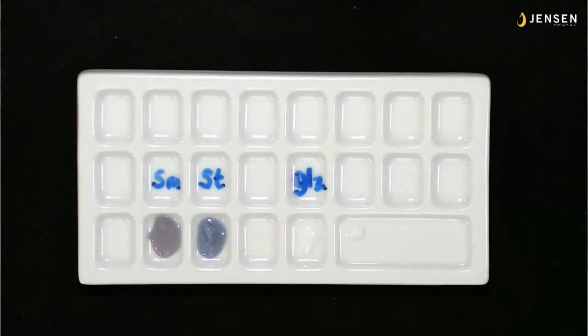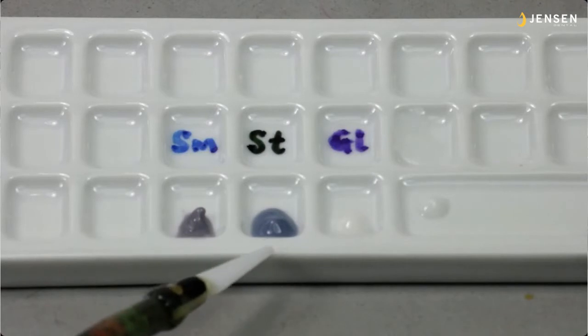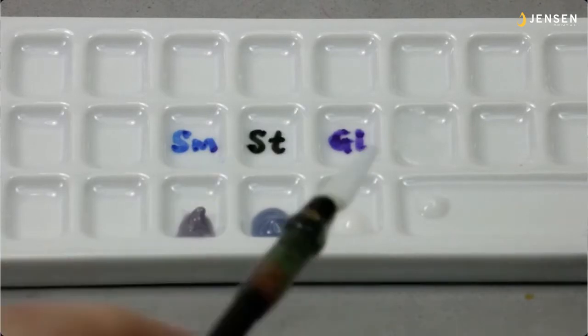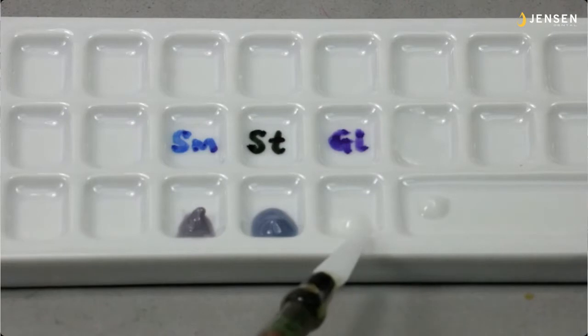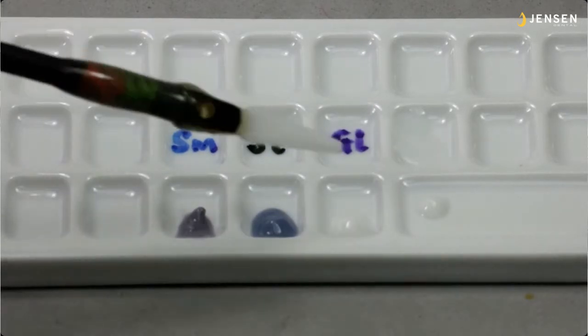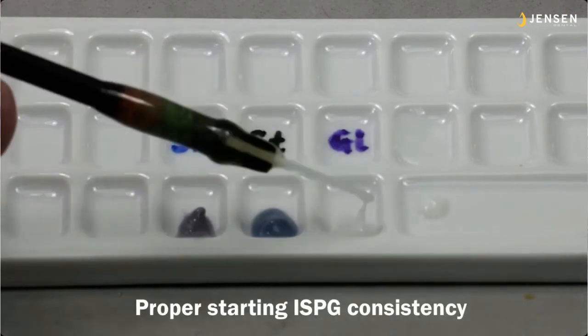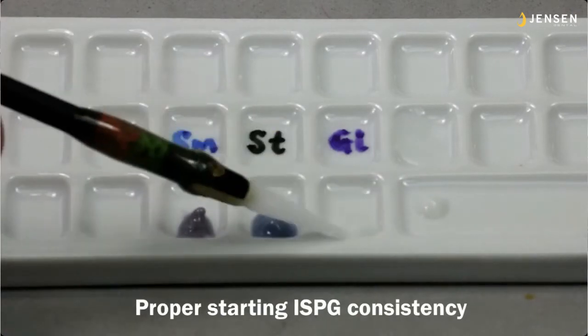So this is some stuff I just did a couple days ago. You see there, it's a little bit different lighting and a different angle. So we'll see it from both angles, because I'm going to show you a few different things I've learned. Of course, we have the glazed paste here, the in-sync glazed paste, and both those little dots, the one in the well there and the one in the well that has room for liquid, are both the same material. So this is a proper starting point for the in-sync paste glaze consistency.